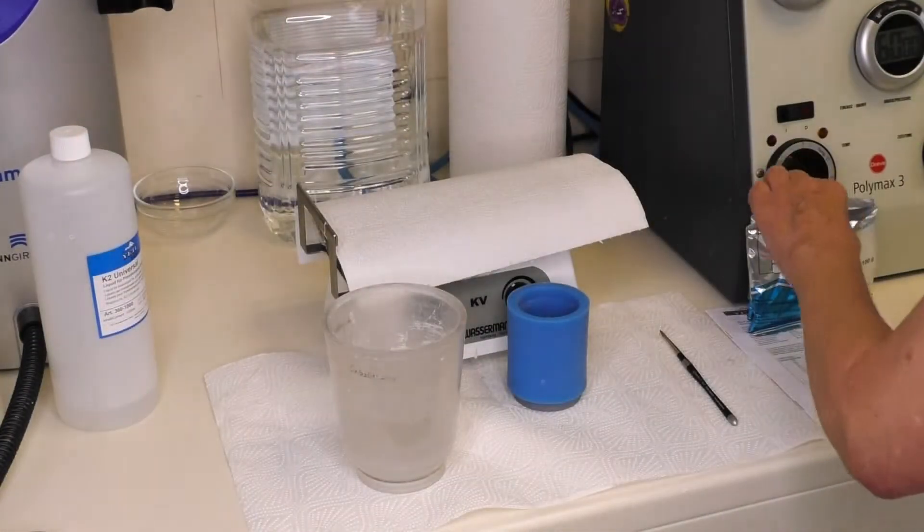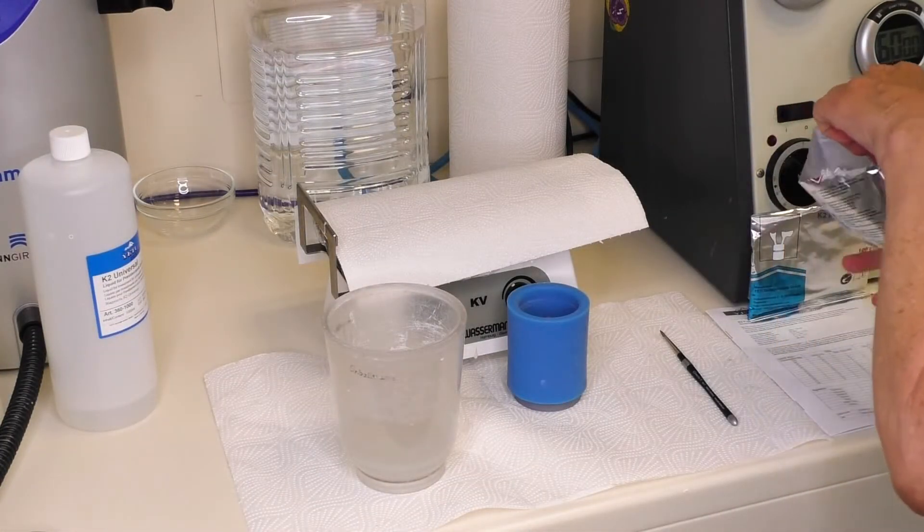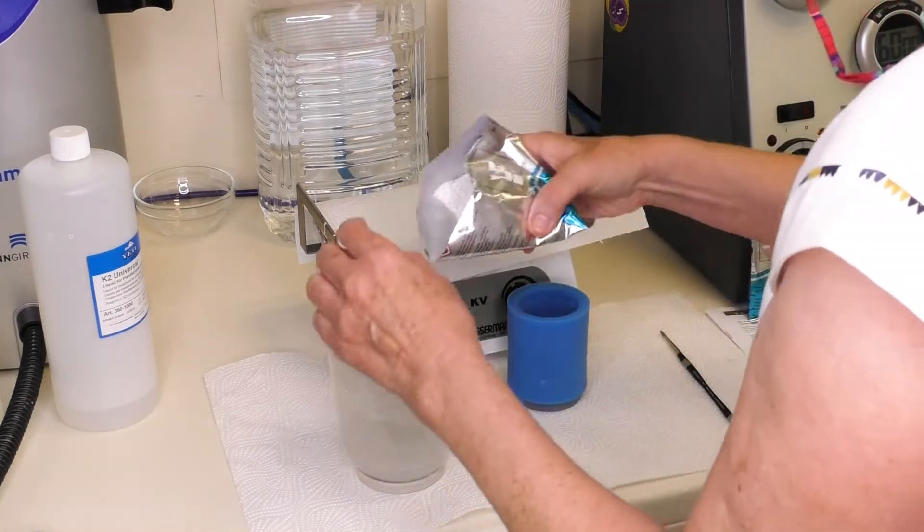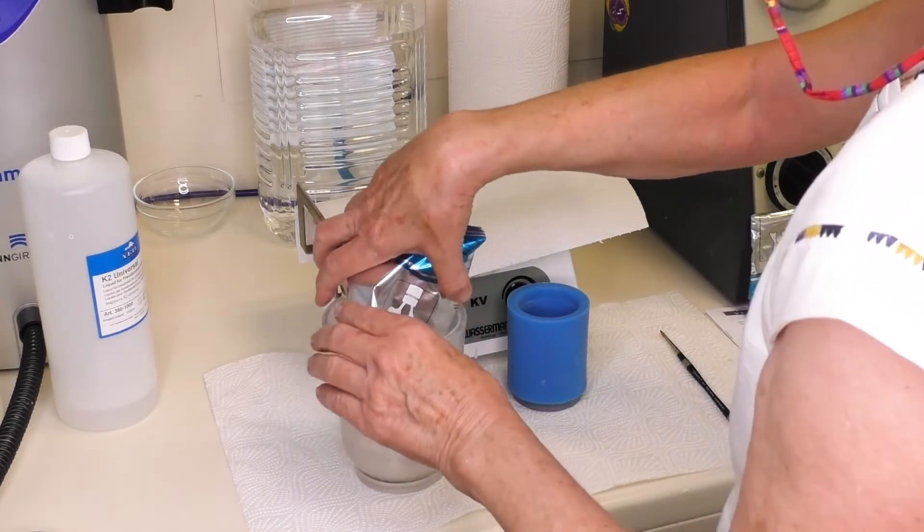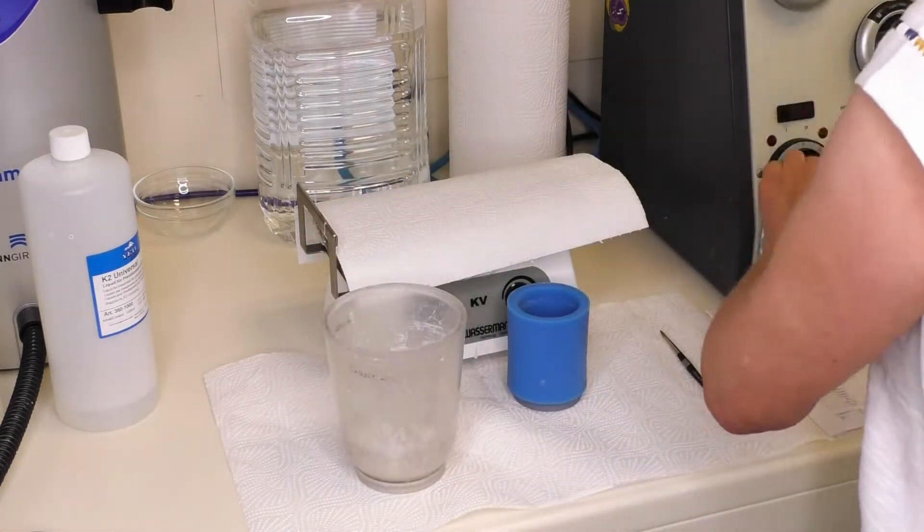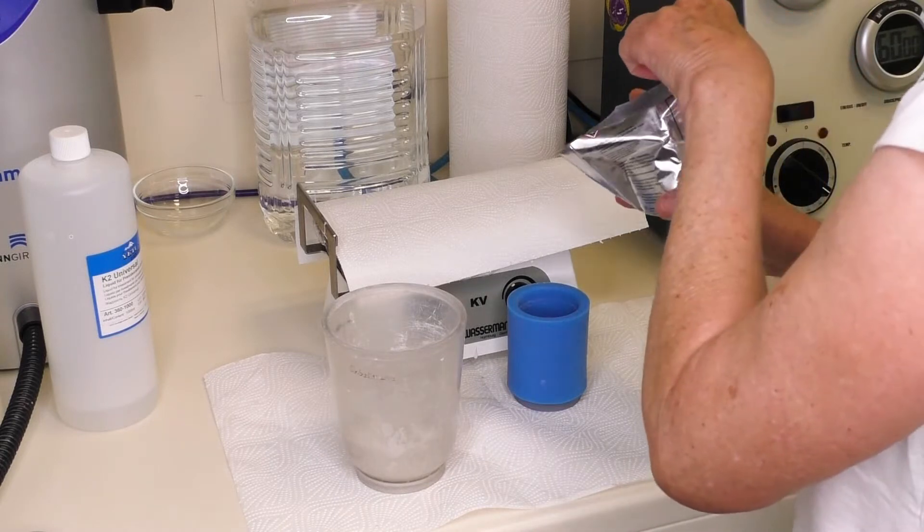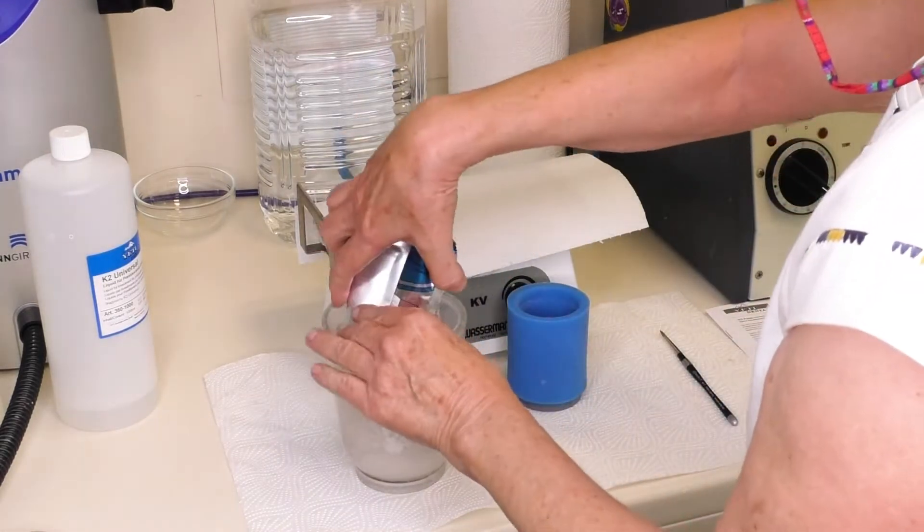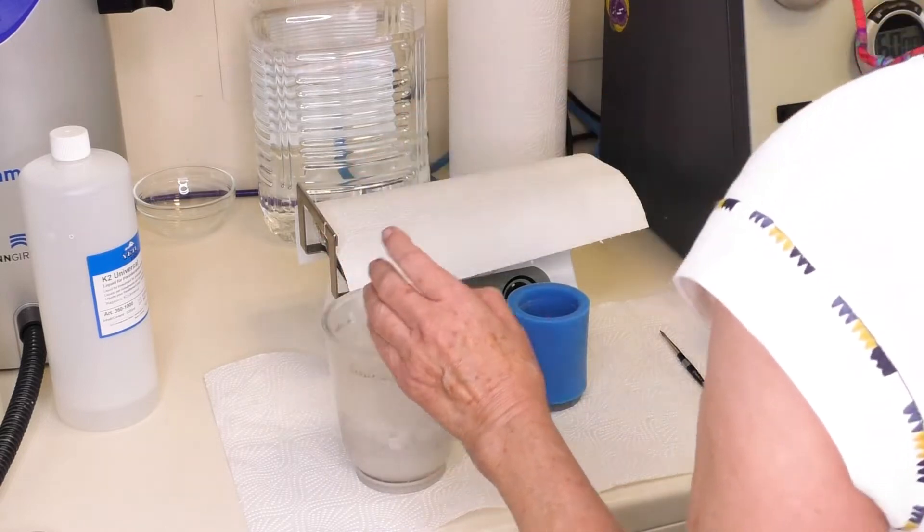We recommend the use of the K2 Press Universal Investment Material. Make sure to follow the instructions of the investment manufacturer. For the best fitting, please store the investment material at about 20 degrees Celsius.